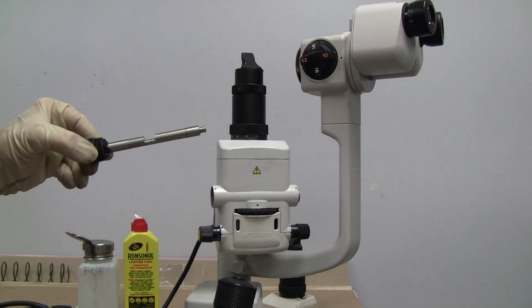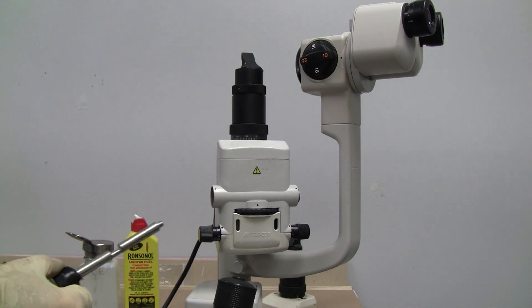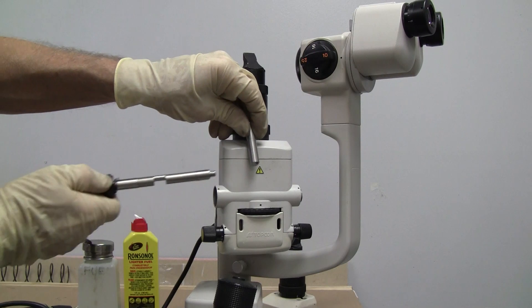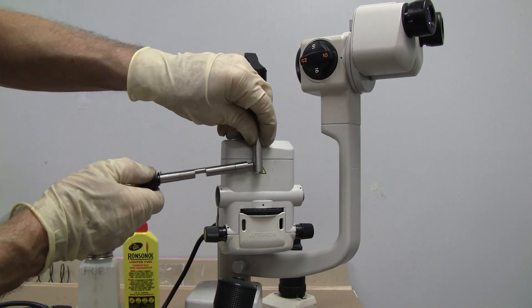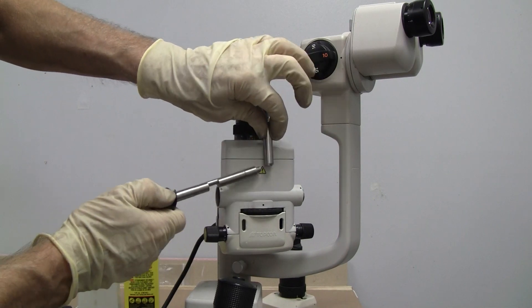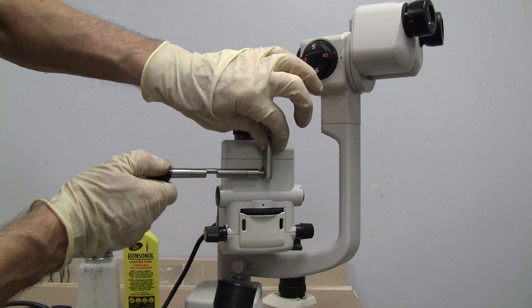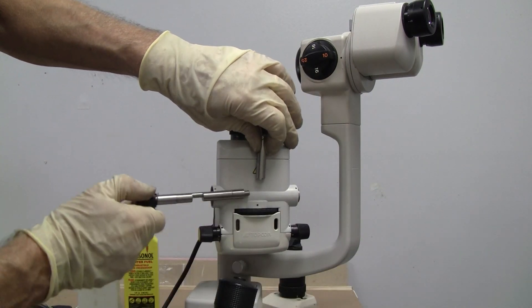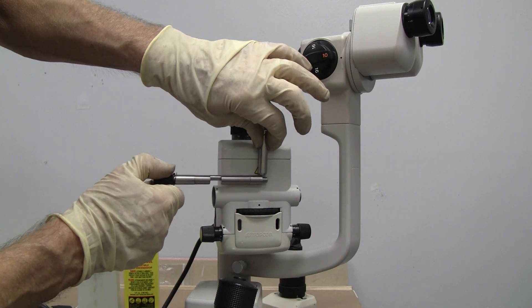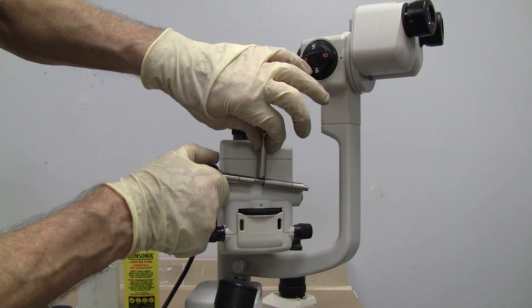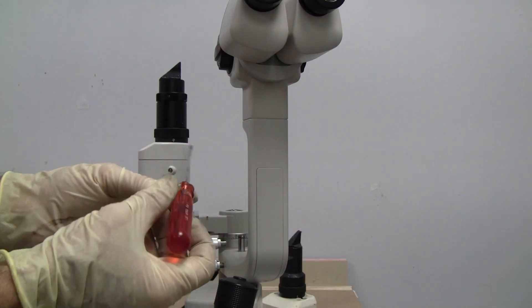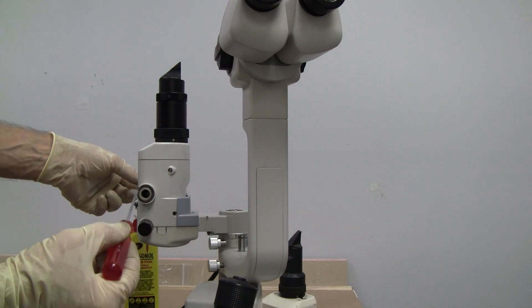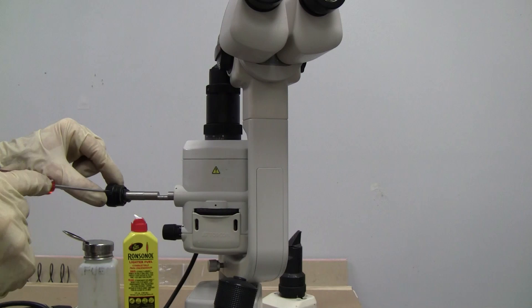Now when it's time to push it back in, as we remember inside here we have this little piston. And as I'm pushing through, I'm going to have to lift this up so I can get this past, because it's going to be down right now. It's going to be down. So I've got to lift it up with something so that I can get this past that point. I'm going to try not to scratch up the walls or the piston. And I'm going to try to lift that piston up while I'm pushing the shaft through.